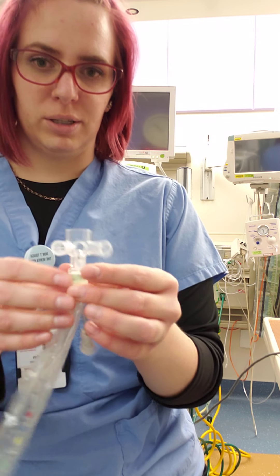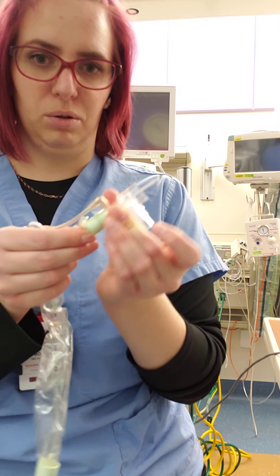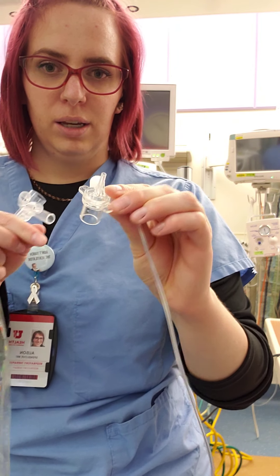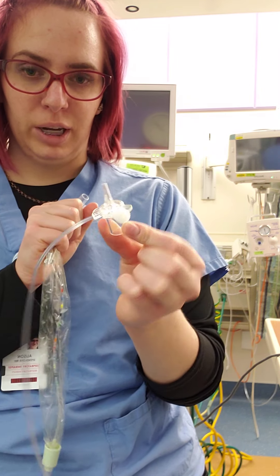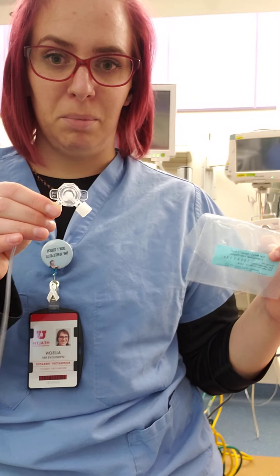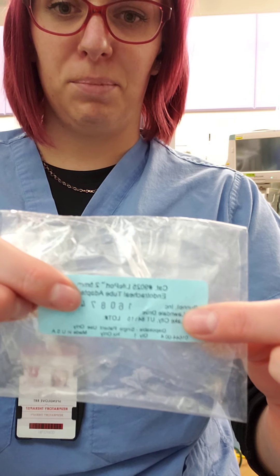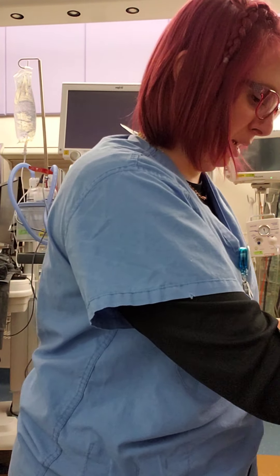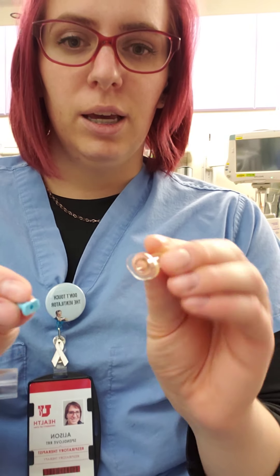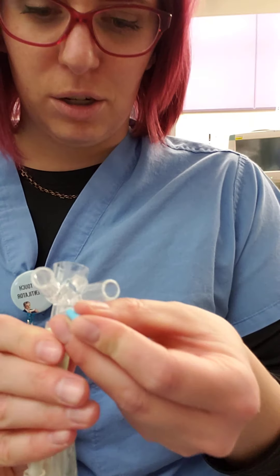We have four ports here on one side and then the major one where our suction goes through. We also have this piece called the life port adapter — if you hear anyone call it a life port adapter, this one is determined by your patient's tube size. For example, the baby I'm setting this up for has a 2.5 millimeter endotracheal tube, so I read 2.5 millimeters on the package of the life port adapter. If we're setting this up without any type of nitric oxide or bleed-in, you will need these two adapters to stick into your suction catheter to prevent a leak.